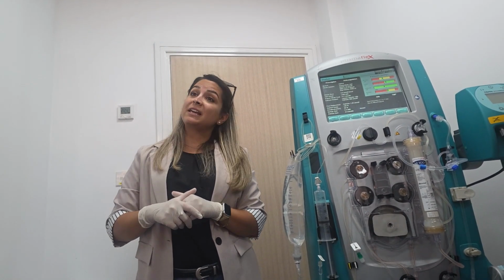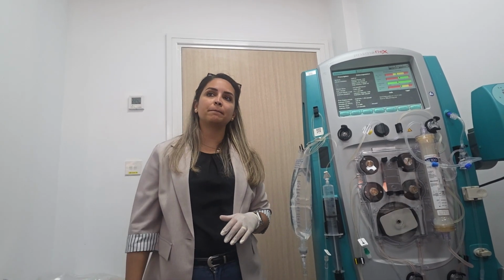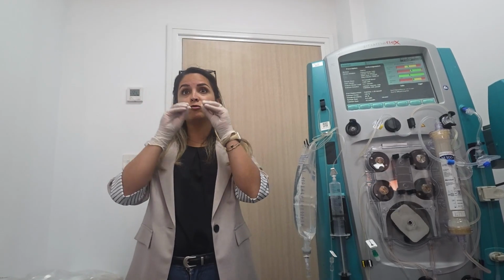If there was an alarm, for example, should we wait for like 15 minutes or no? Yeah, that's good. Wait for 10 to 15 minutes, then take samples. No need to wait for more than that, 10 minutes would be enough. Very good, Kathy.